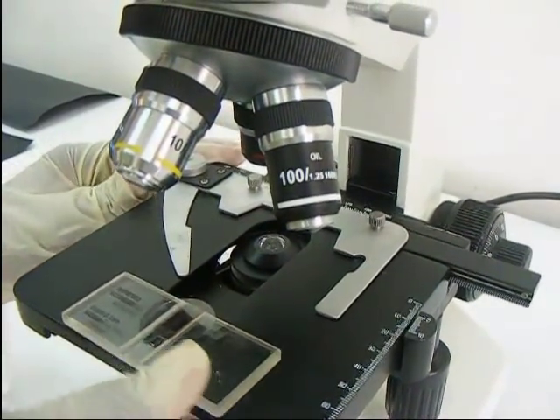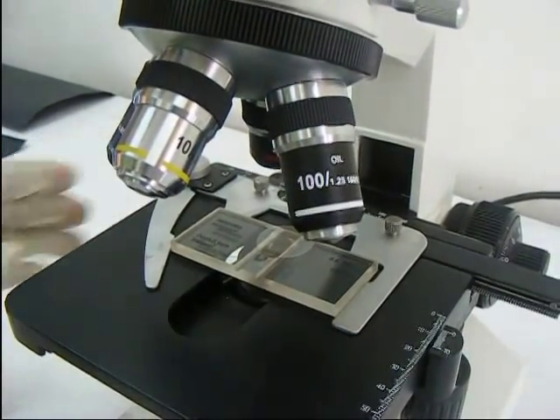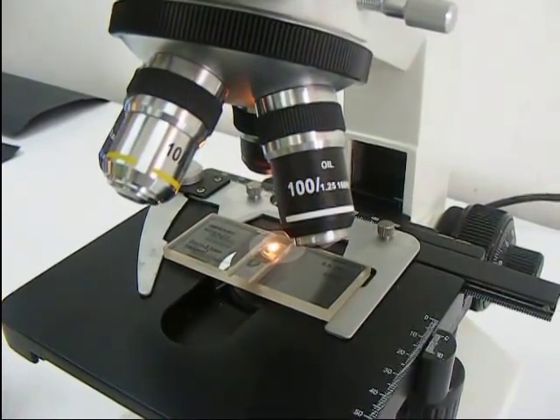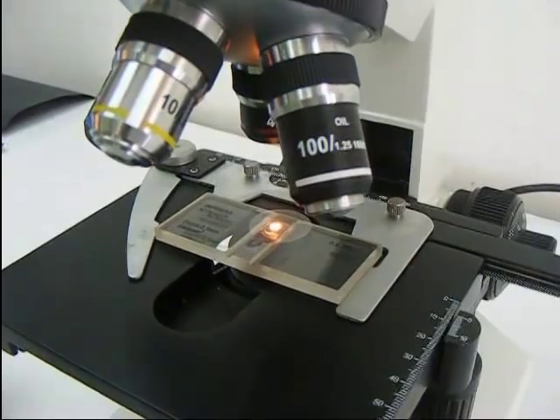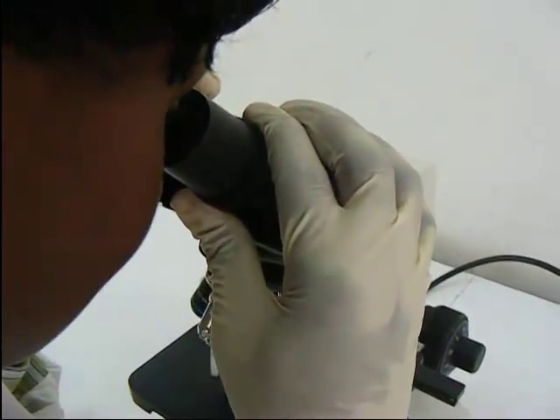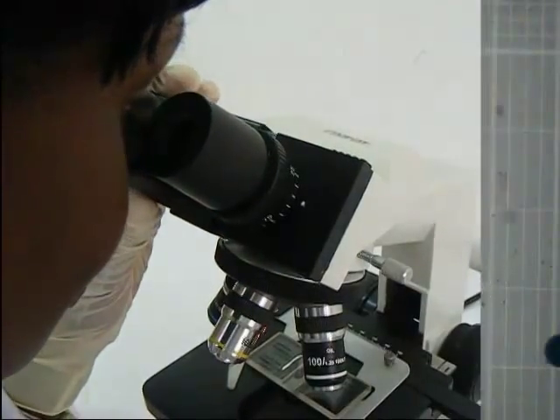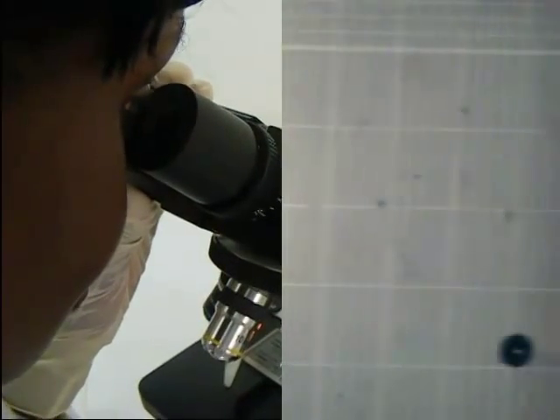The hemocytometer is mounted on the stage of the microscope and various adjustments are made for suitable viewing. At objective magnification of 4, the counting chamber is brought into focus.